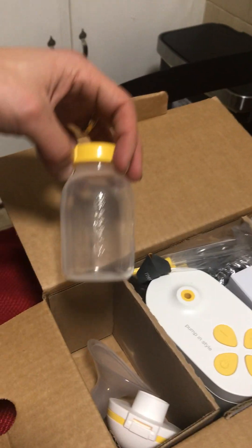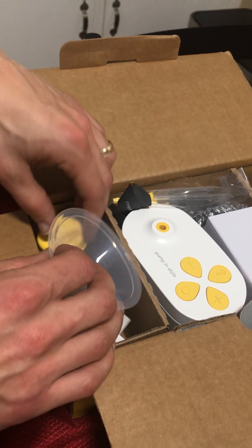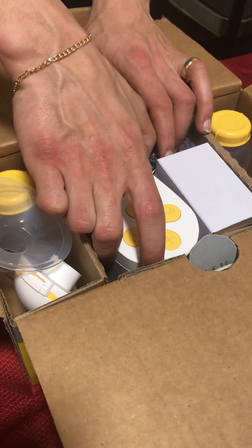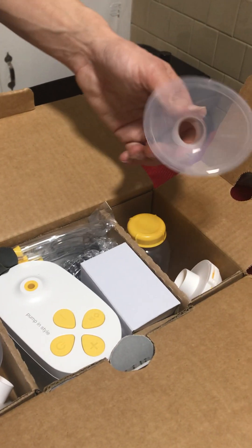Look at that! It's like a Nintendo — not quite, but that's for you Jason Lee. Not sure what's what, but now you can kind of guess what this is. We have an idea what this is.